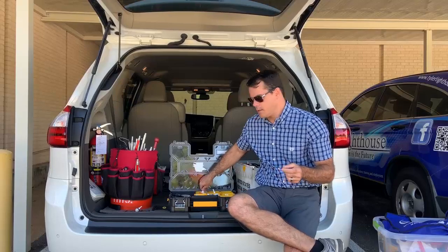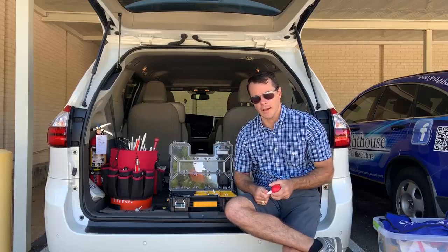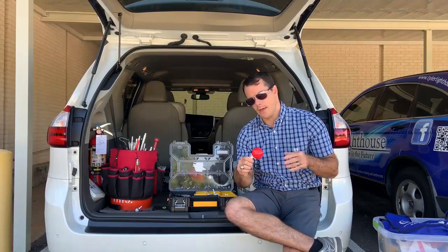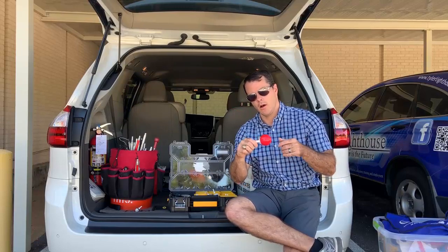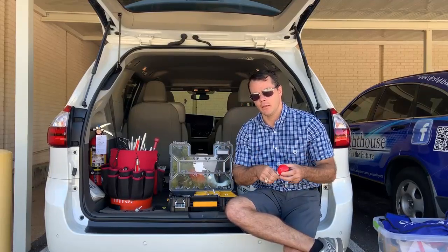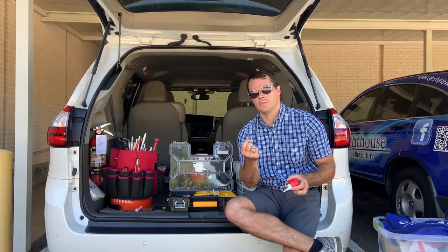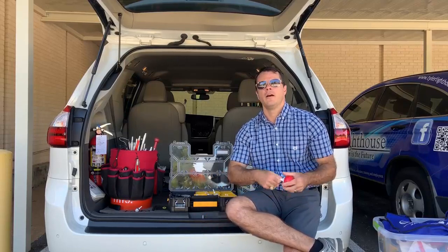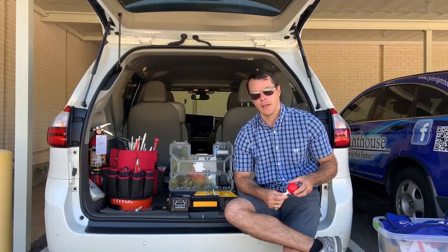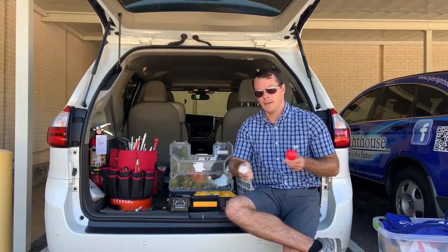A variation of that is the roller ball. This comes in different colors — you get it in classic white or red. AmbuTech is also playing around with some other colors like green and orange, but I just try to stick with either red or white. The roller ball is on a ball bearing and it's heavier than the rolling marshmallow. It provides a lot of tactile feedback and covers a large surface area. It's pretty heavy, which is good for your adult clients that are having severe issues with neuropathy — so when you roll over that drop-off, you feel that. It's pretty hard to miss; it encourages consistency of detection. But if I'm working with a young kid, I'd probably steer away from this one and go more with the rolling marshmallow, just because it's lighter and not as cumbersome.